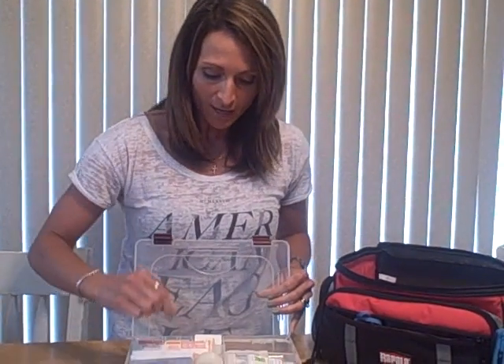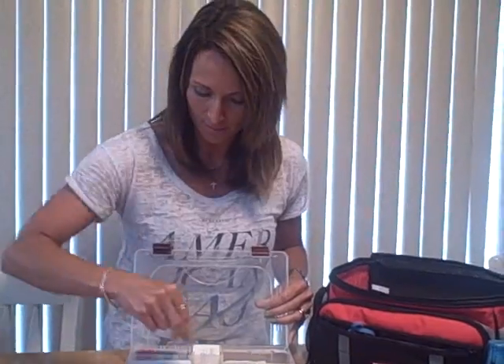I have a flashlight to locate victims. In my first case, I have waterproof tape for securing dressings. I have large band-aids for larger cuts and several small band-aids for the smaller cuts.